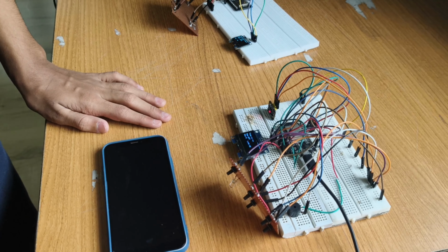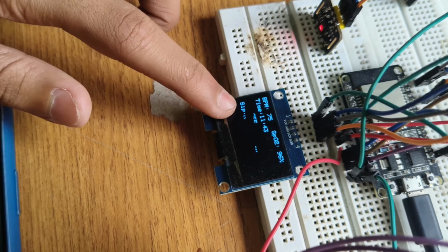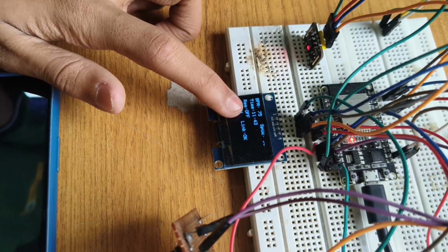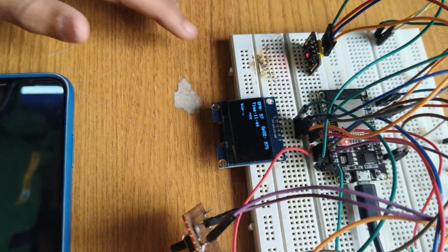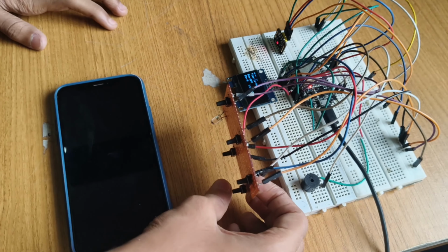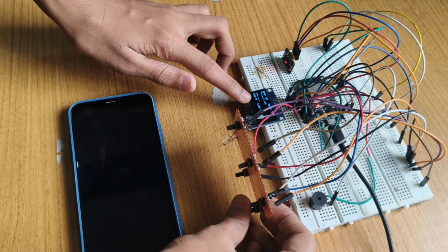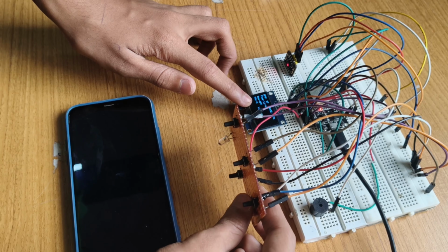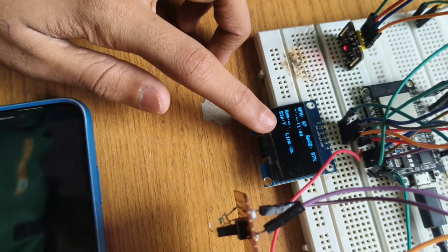Now let's look at the next feature. The next feature is the sleep feature. Now you may ask, why is this here? It is because, as I said previously, when the reminder is turned on, it asks the user every 30 minutes to place their finger on the pulse oximeter. But the sleep mode prevents it. Imagine you are sleeping. It does not show the reminder after 30 minutes. But when it is turned off, it will show. As you can see, it says sleep equal to yes.